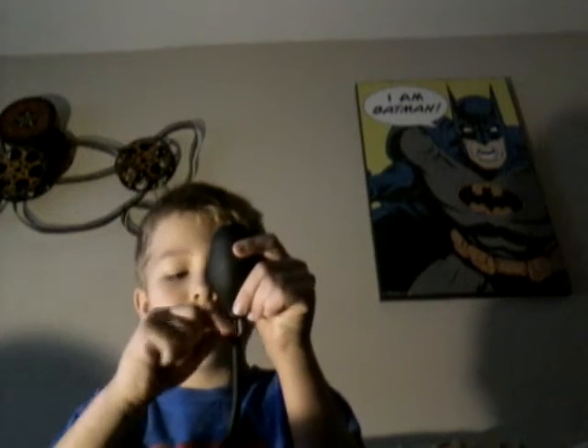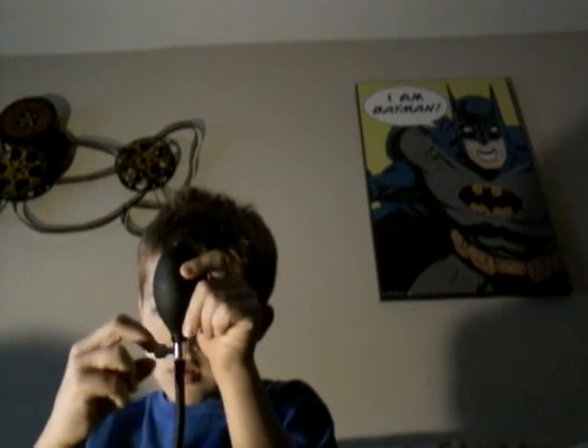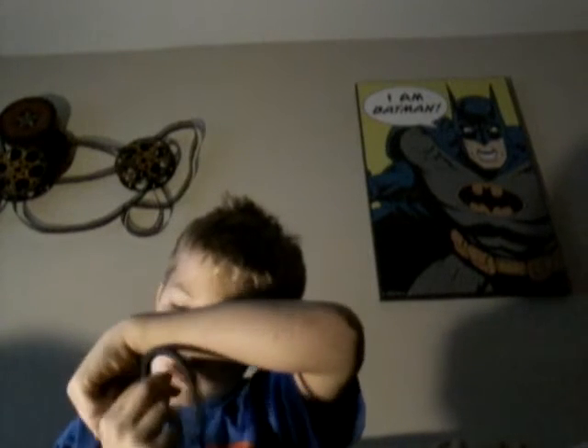Oh no — you're supposed to hold it like that. I messed up guys. Please do not mess up, because this is not a toy. Do not play with it. I have known people that played with it — they squeezed it to three hundred and it burst.